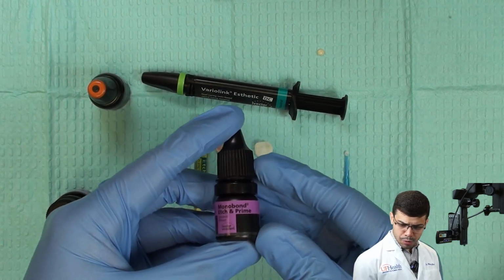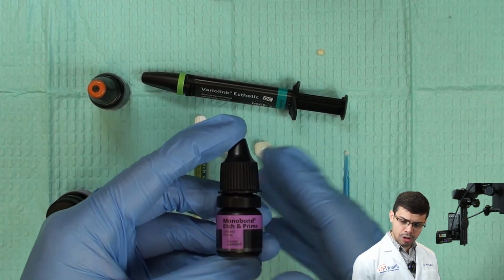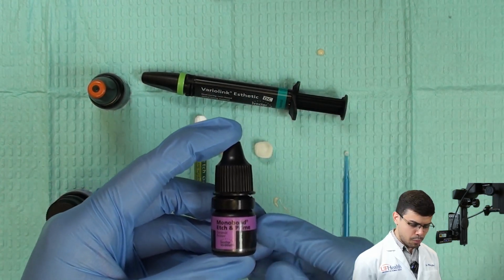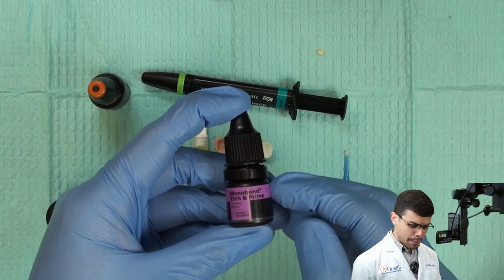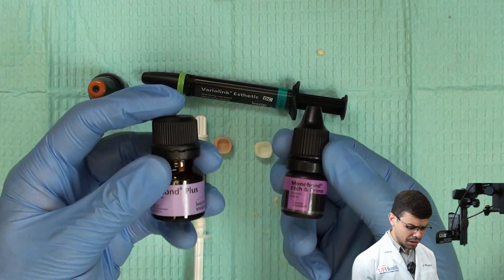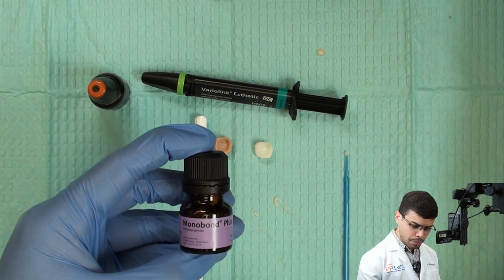Although this product is very good, and some practitioners might use it, we're not gonna use that. In the school, we mainly use the other systems, okay? It's also simpler to have fewer bottles and different types of materials that can complicate your protocol. So this is just for you to pay attention to it because it's different. Monobond Etch and Prime is different than Monobond Plus. So what is Monobond Plus?